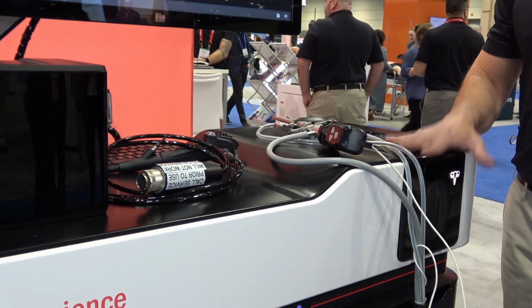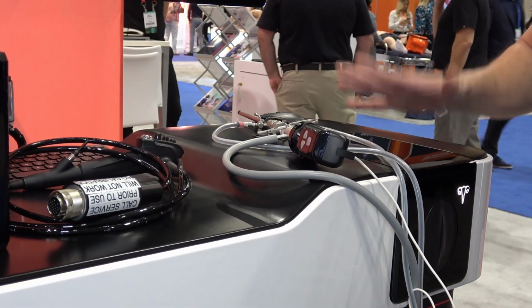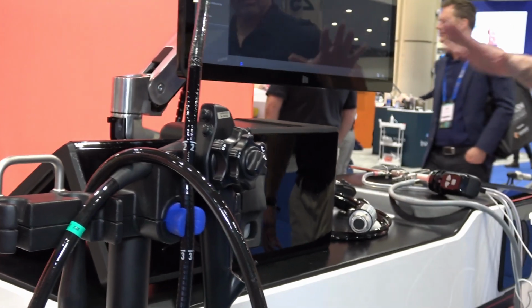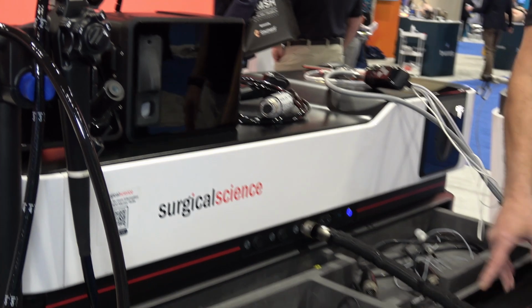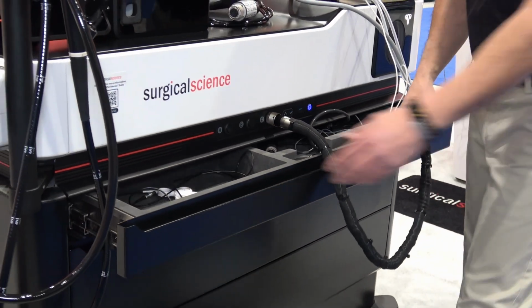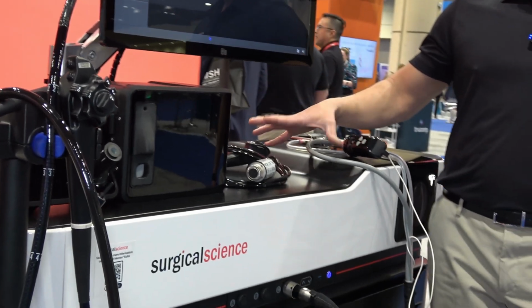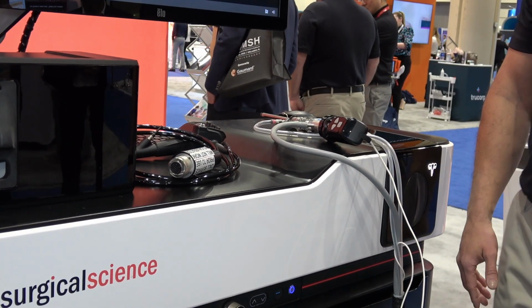Its main role is to cover everything flexible and rigid endoscopy, starting with GI endoscopy, endourology, bronchoscopy, hysteroscopy and the TURP, and of course we do have the rigid scopes in the drawer, for the endourology simulation. Having 4 different simulators on the same platform allows sim centers to get a machine which covers so many curriculums.